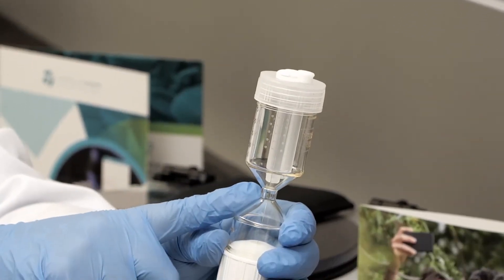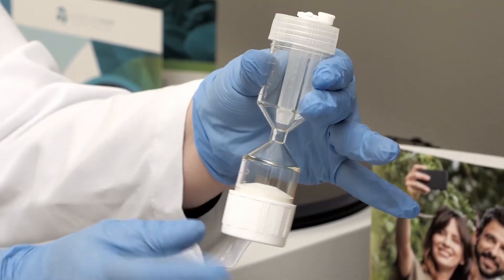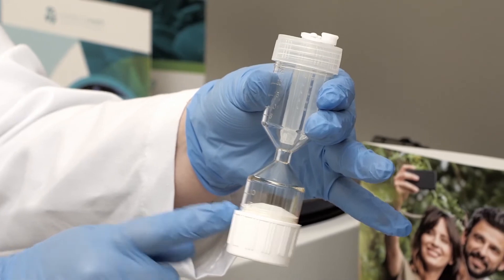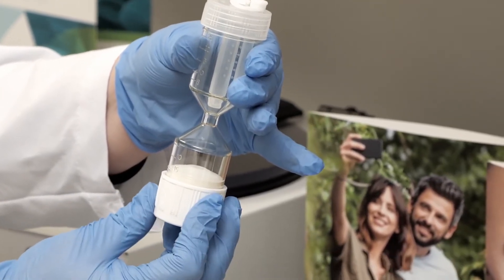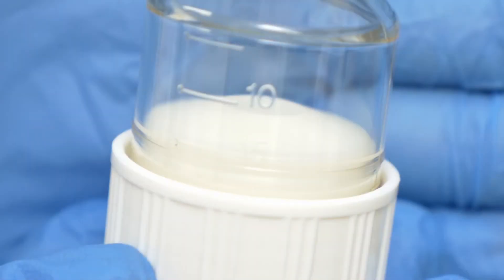Confirm the bottom chamber is open to the 15 ml mark. To adjust, gently rotate the bottom collar clockwise until the top of the internal piston is at the 15 ml mark.